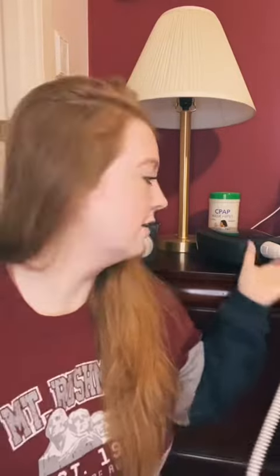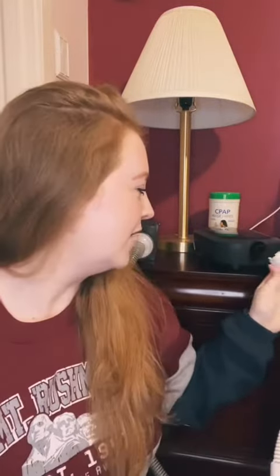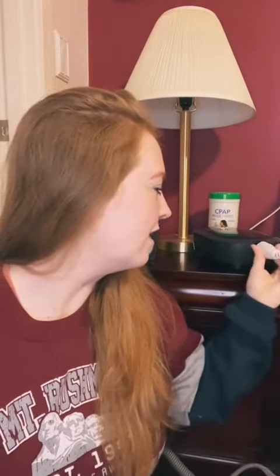The other thing I'll do because it's so much easier is just unclip the hose and wrap it around my neck — not too tightly. It makes me think that if we had any home intruders, that would be the time to walk in, because they'd see me with my mask and a hose — maybe that would be enough for self-defense.